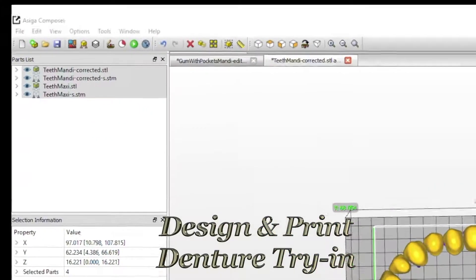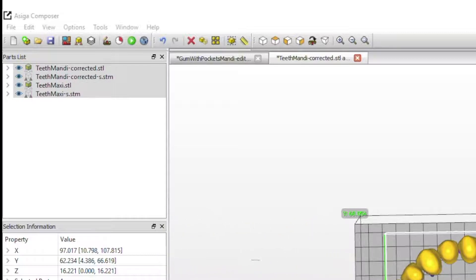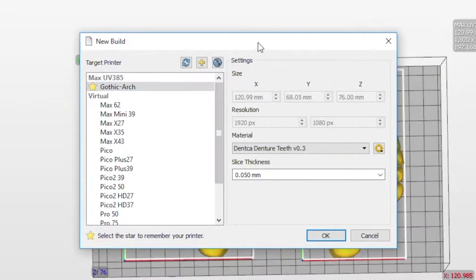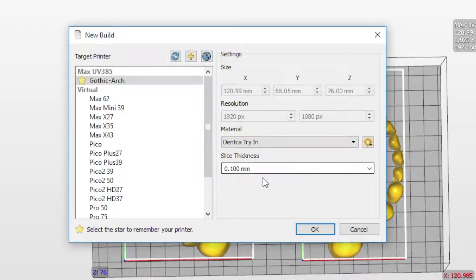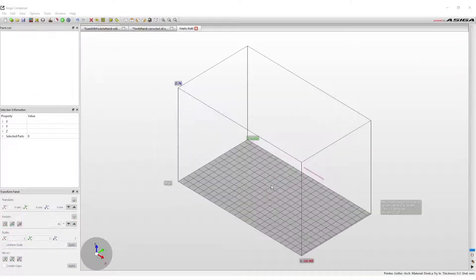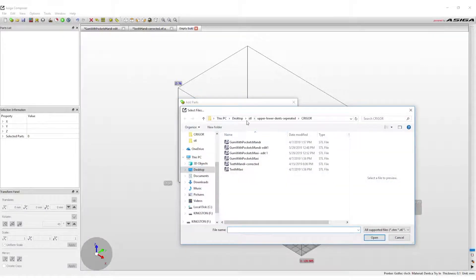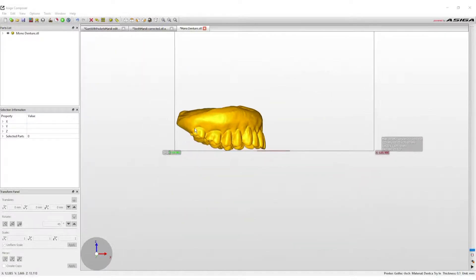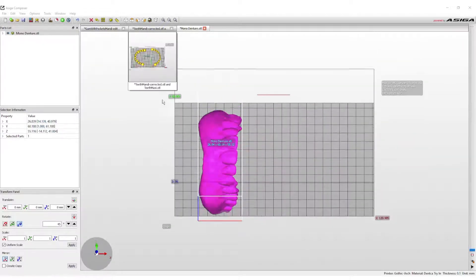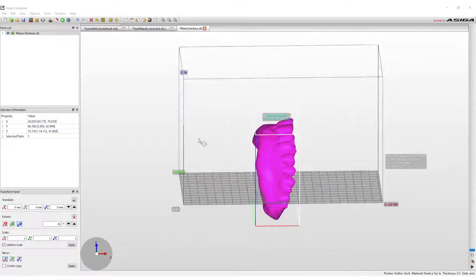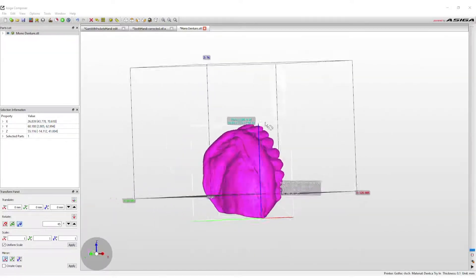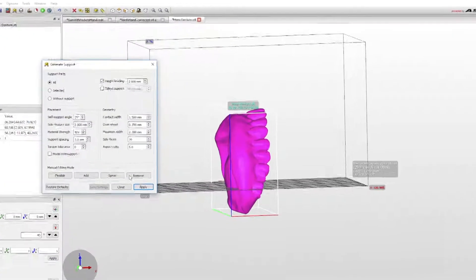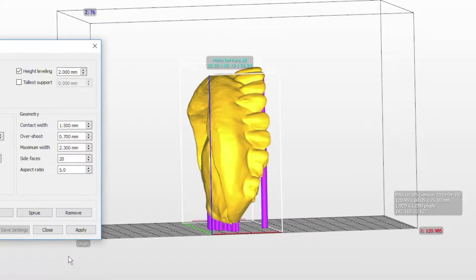Denture try-in. To print a denture try-in, start a new build by selecting the New Build option in the top options line. To change the material, click on the drop-down menu and select the try-in material. The slice thickness must be at least 100 microns, which can be changed in the slice thickness drop-down menu. Then press OK. A new build project will now open. Click Add Parts from the menu in the upper left corner, then click Select File and find and select the try-in file. Press Open and then Open again. The try-in will now be imported into the print software. The bases print best in the vertical position as it reduces the number of supports necessary. If the try-in is out of the print envelope when Add Supports is selected, the program will automatically place the try-in within the envelope parameters before adding the supports.